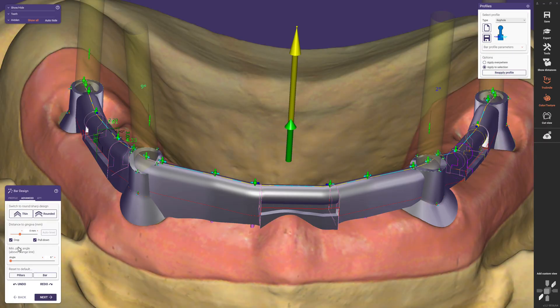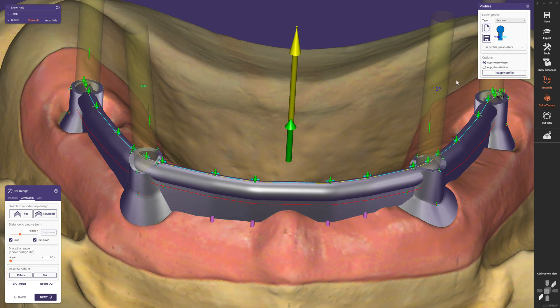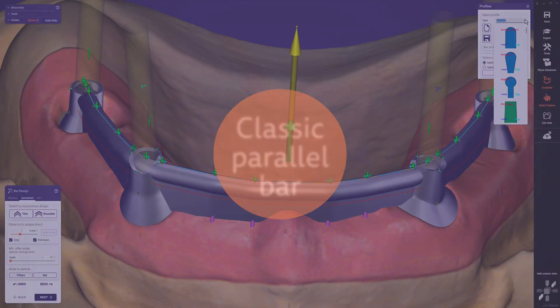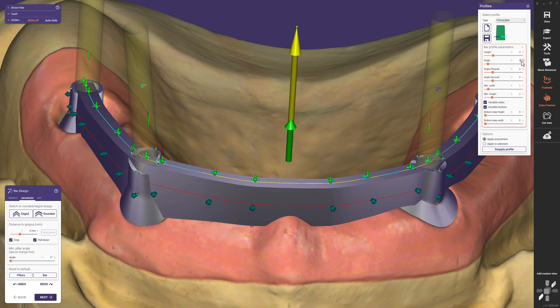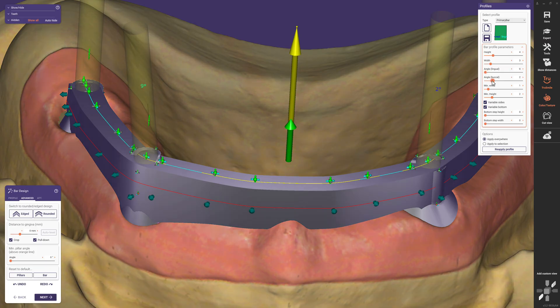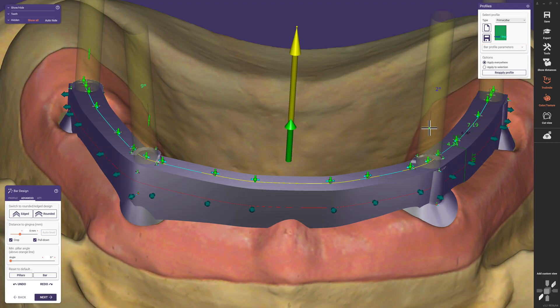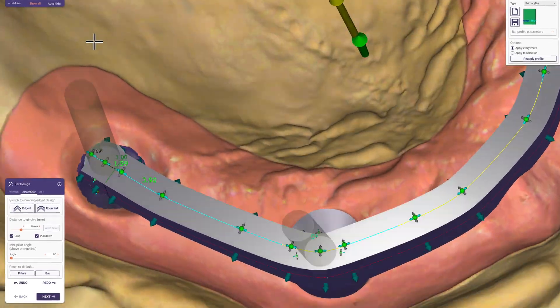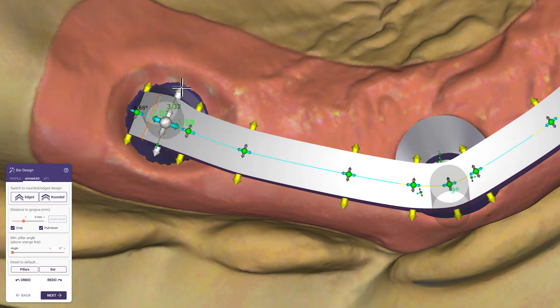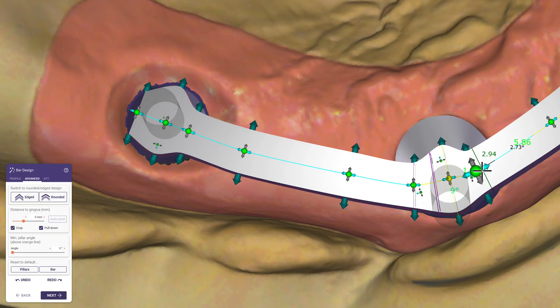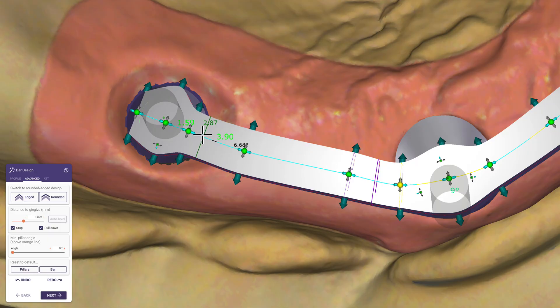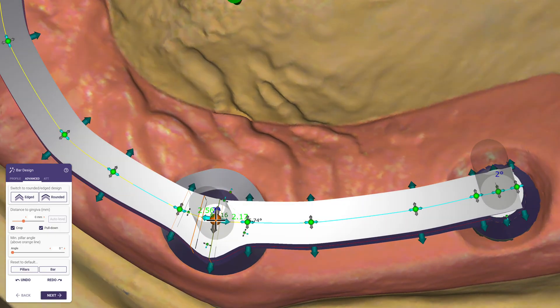The last option in the Advanced tab is to reset pillar or bar to default. Let's look at another parallel bar design where pillars entirely disappear inside the bar. We select the primary bar profile, open the bar profile parameters, choose height and width, and set the angle for both sides to zero degrees. With 'Variable sides' activated, we have the possibility to hide the pillars inside the bar design. We lower all pillars exceeding the design by moving the central arrows downwards, then enclose them by moving the arrow closest to the pillar. Hiding pillars works best with one control point placed on the pillar itself, accompanied by two additional control points on both sides — saving time and simplifying the design.